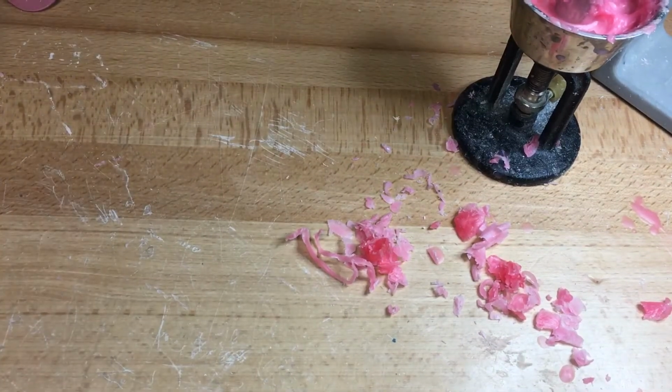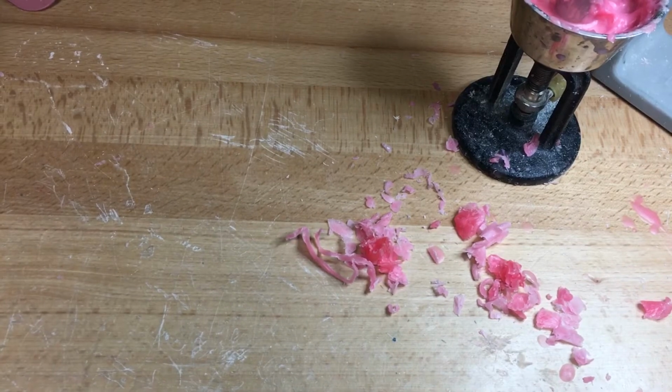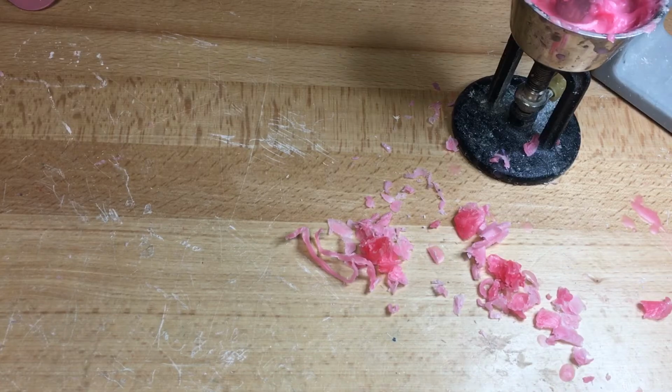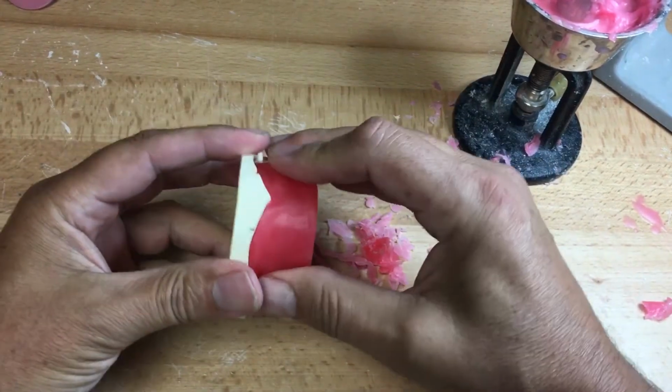Okay, welcome to part 2 of Heartbreak Video. I just realized after talking for another half hour, 45 minutes, it didn't record. Lovely. So, what you missed, time-lapse camera then, is I finished the occlusion rim.